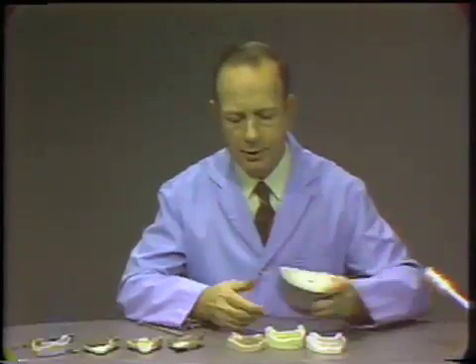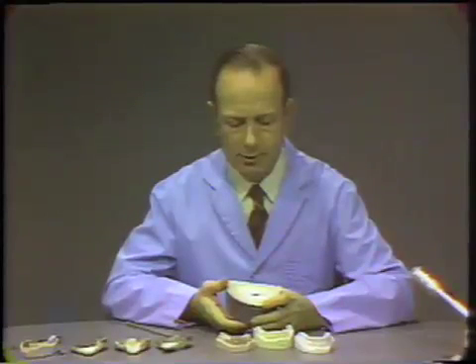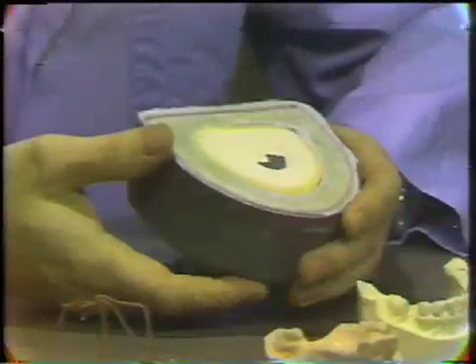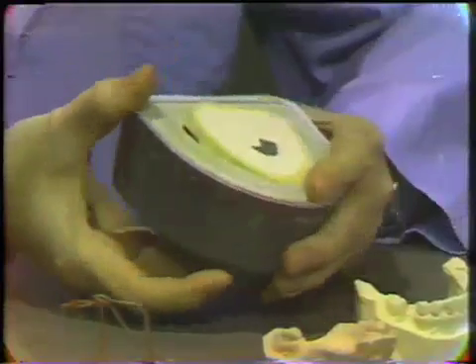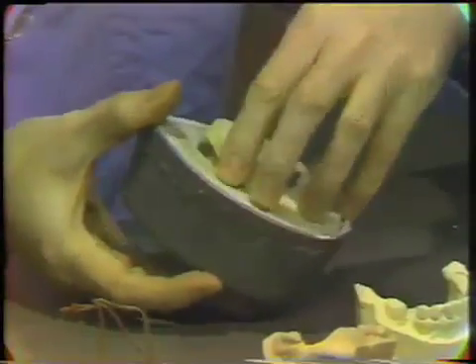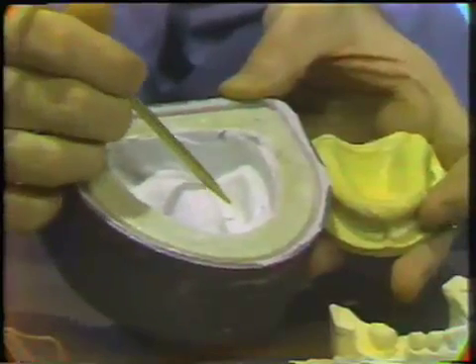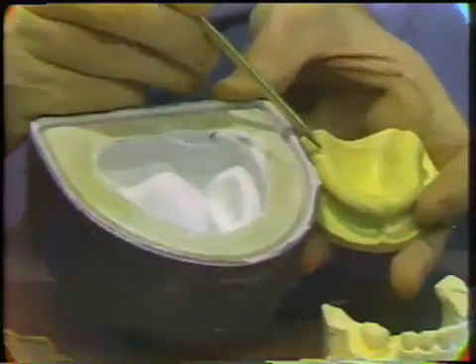I would like to describe some model and die materials. First, let's take a look at the relationship between a model and the impression. We have an impression of an edentulous arch. If I remove the model, we can point out the relationship between the impression and the model. The first thing to notice is that the highest point in the impression is the lowest point in the model. Also, the lowest point in the impression will be the highest point in the model.